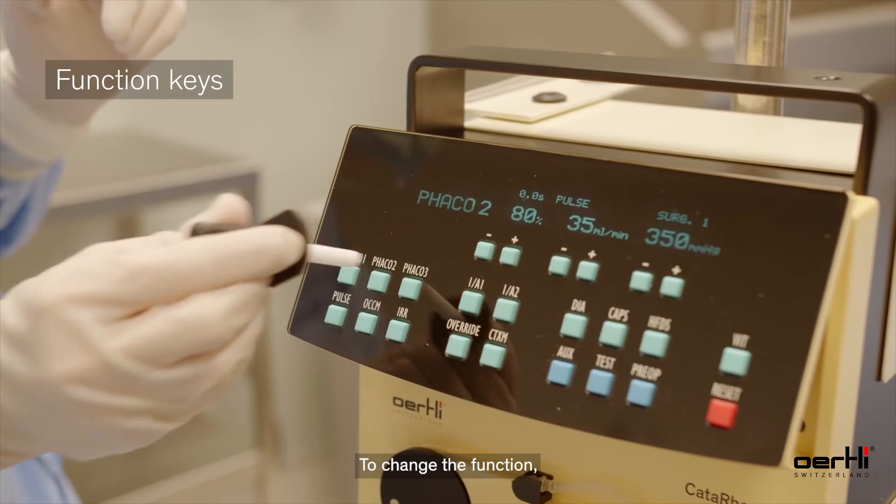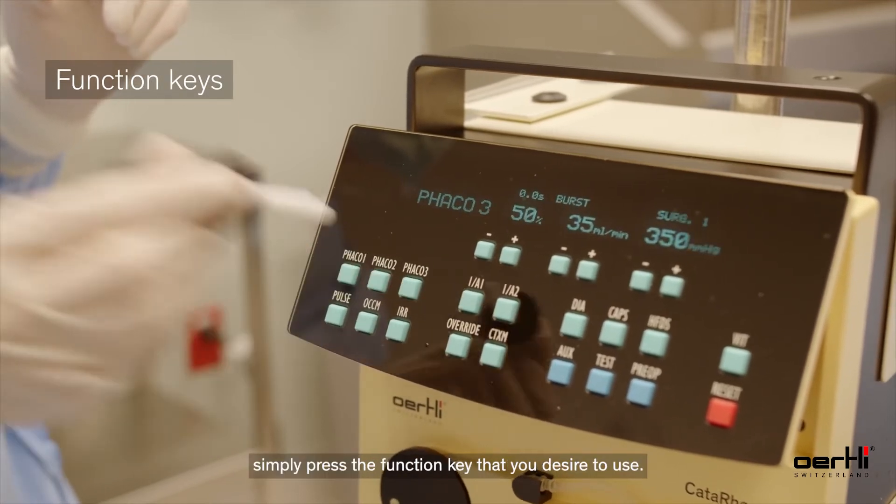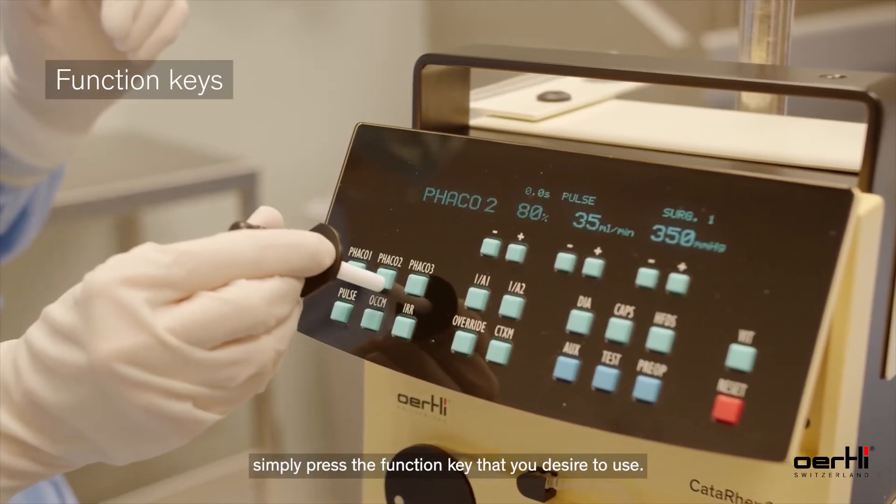To change the function, simply press the function key that you desire to use.